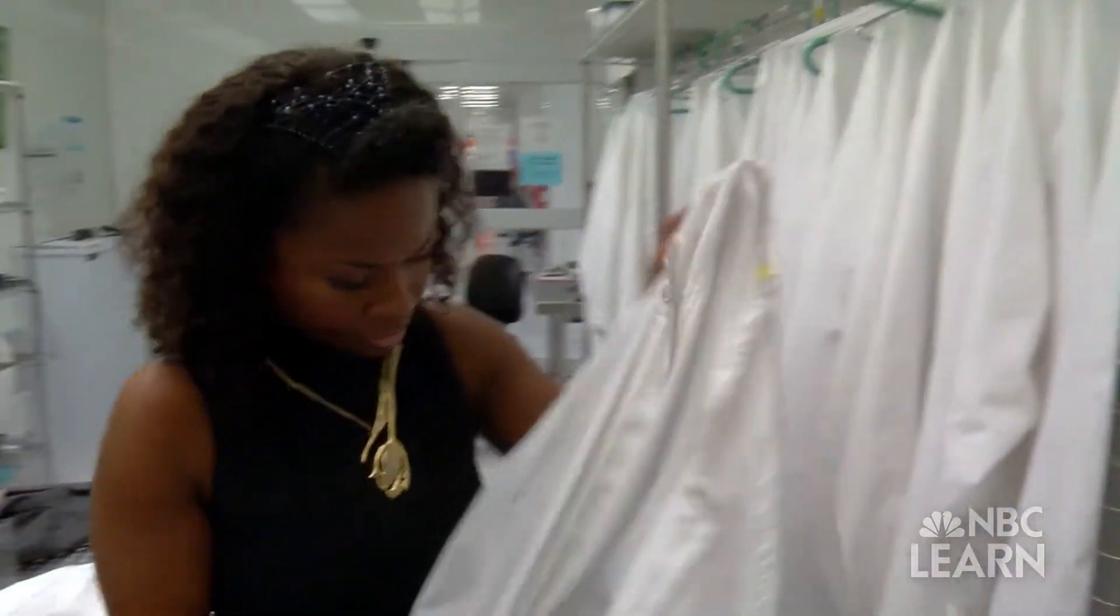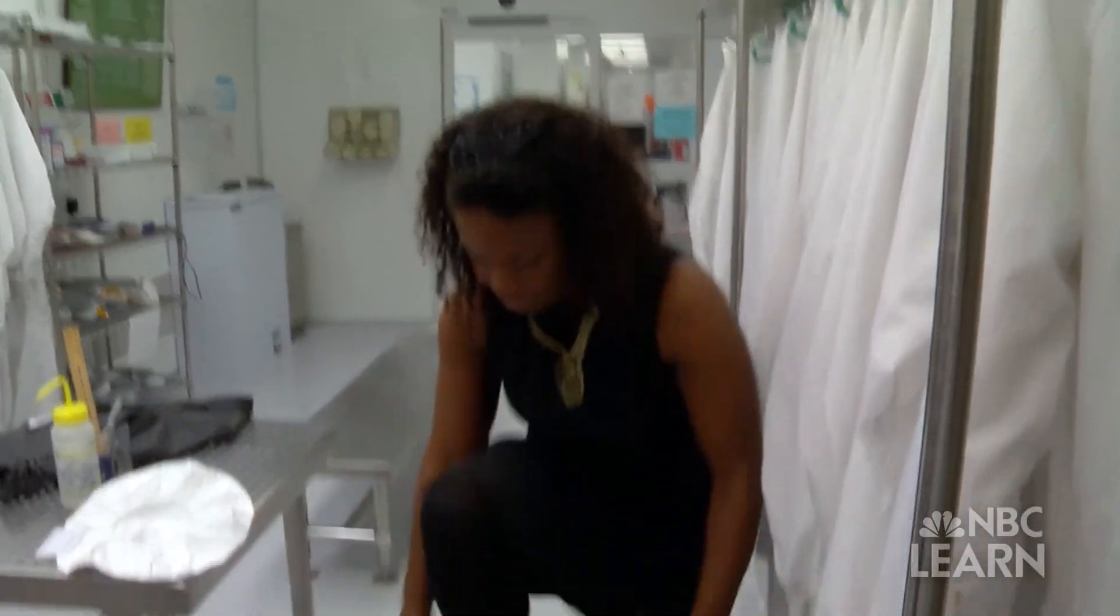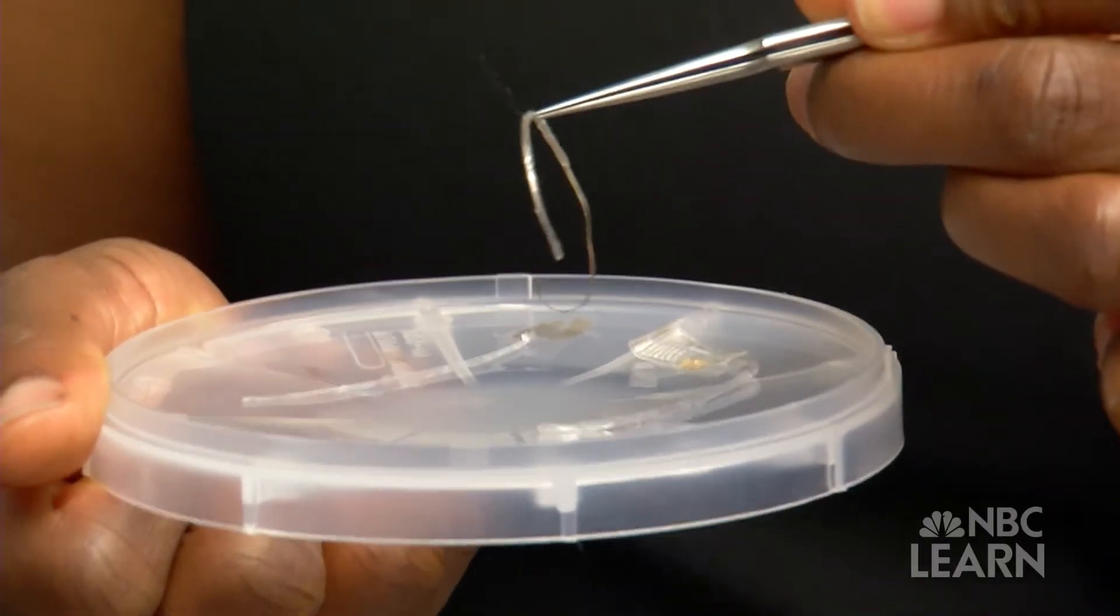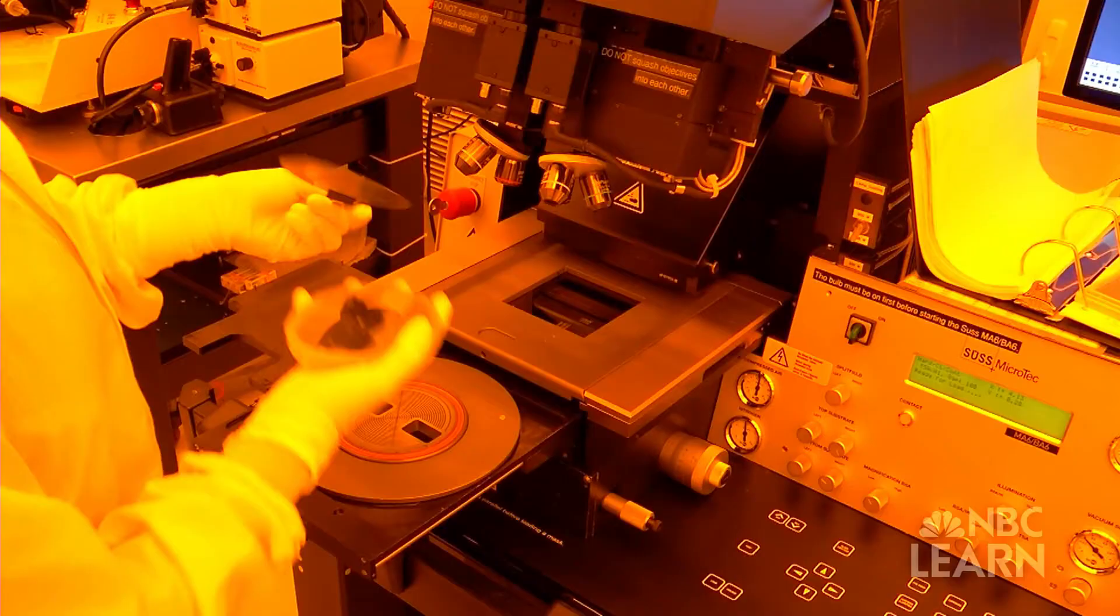Angelique Johnson is the CEO of Memstem, a medical device start-up that is innovating how cochlear implants are manufactured.